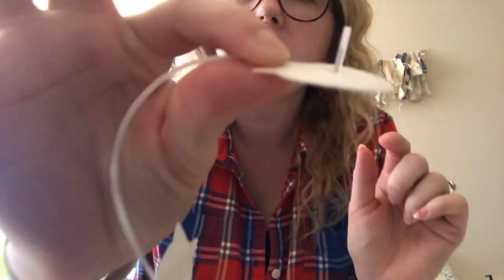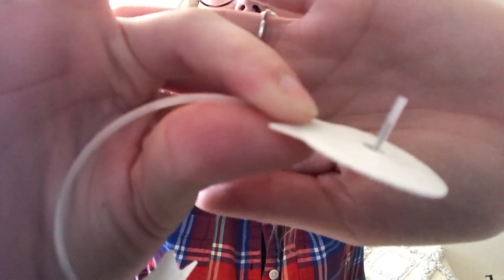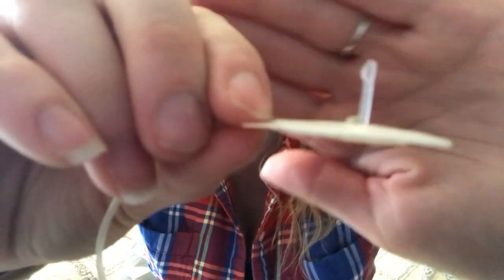The pump says the cartridge is changed. It's going to push all the insulin through this tube and get the air bubbles out. I'm going to make sure there are no tears or kinks in the tubing and make sure insulin comes out of this little needle — the one I took out of my body earlier. I can see the insulin right here, and there hasn't been any leaking, so I know I'm good to go.